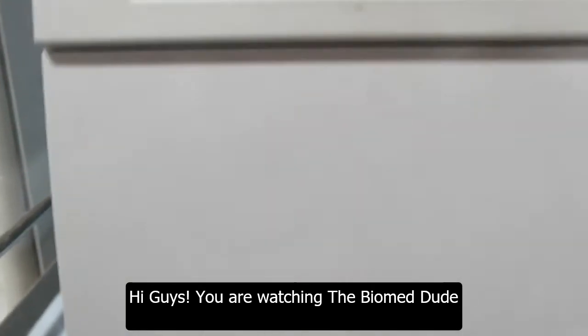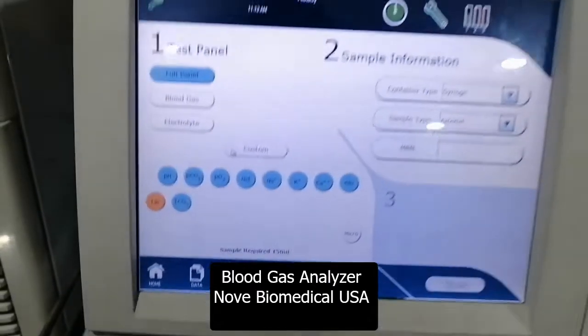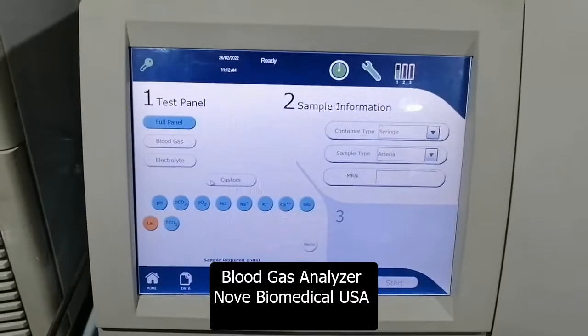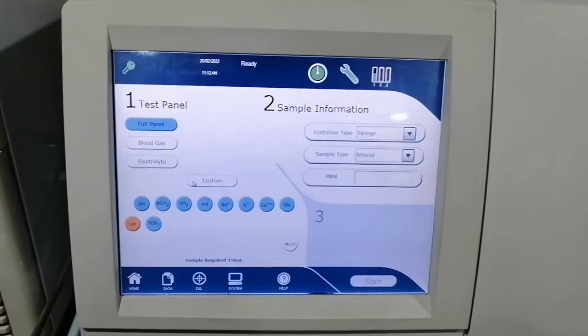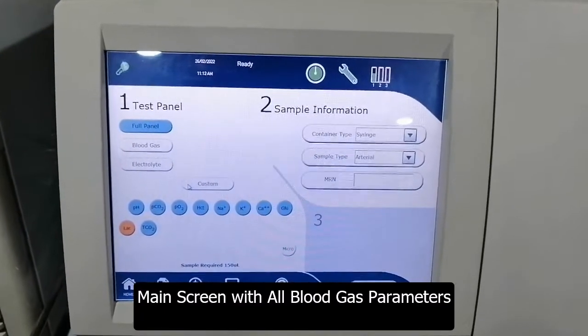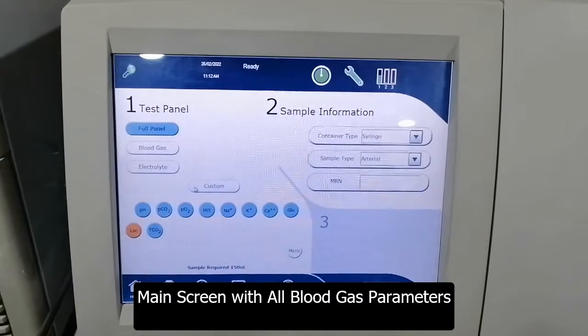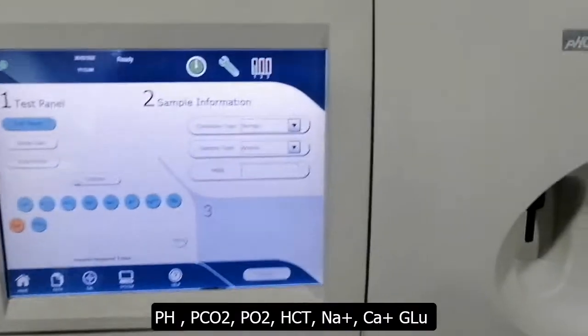Hello guys, you are watching the Biomed Dude. Today we are talking about the blood gas analyzer — this is Nova Biomedical USA equipment. This is the main screen of the unit and all parameters are shown on the screen.